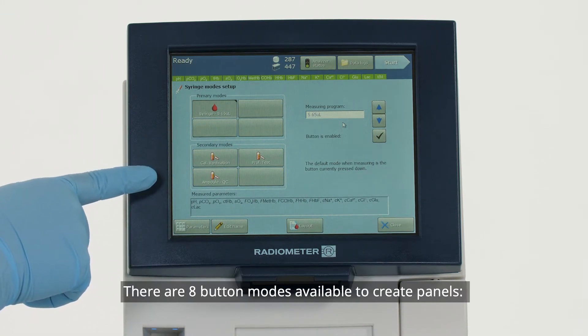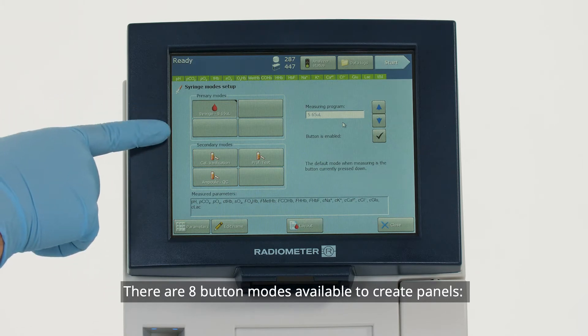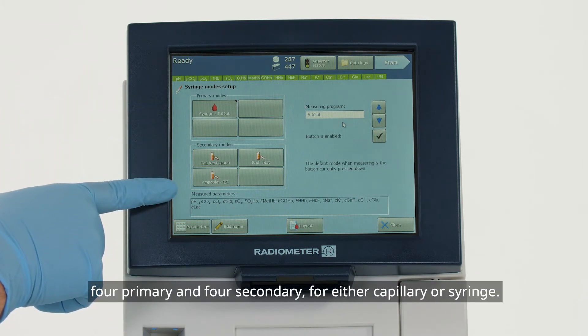There are eight button modes available to create panels, four primary and four secondary, for either capillary or syringe.